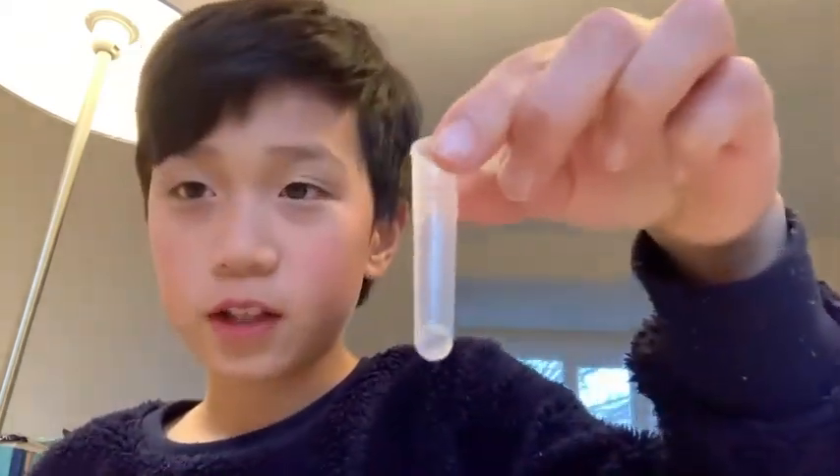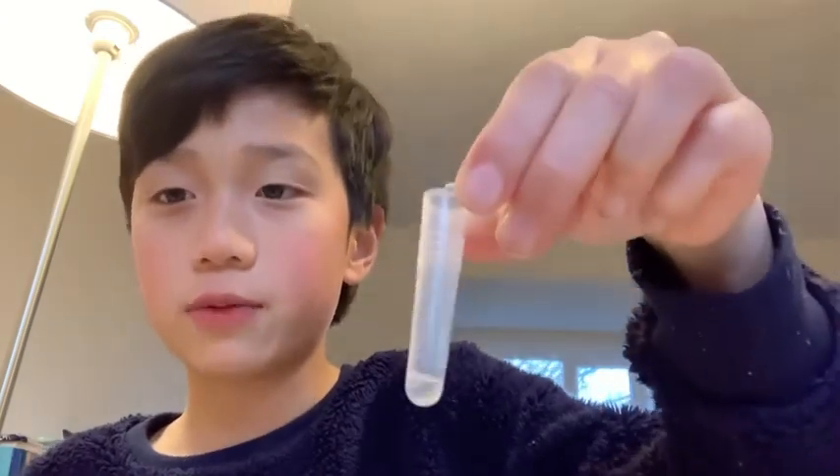After that, you have to poke your nose with this — you have to wiggle it for 10 seconds. You put it deep in your nostrils and then wiggle it: one, two, three, four, five, six, seven, eight, nine, ten. So that's done.